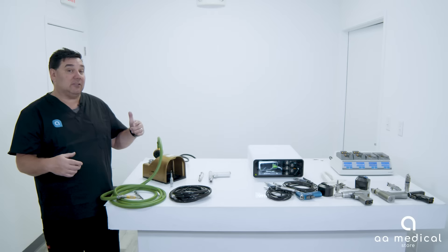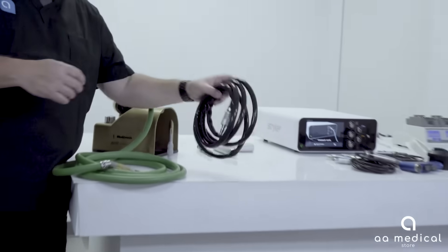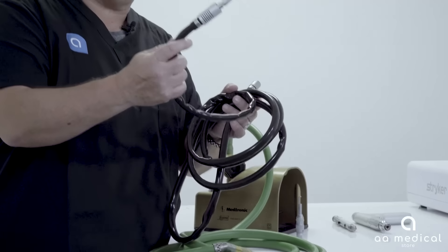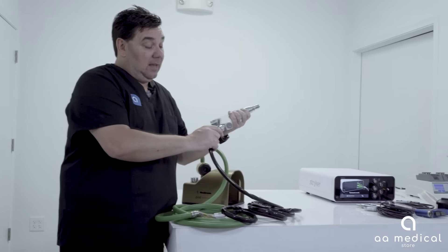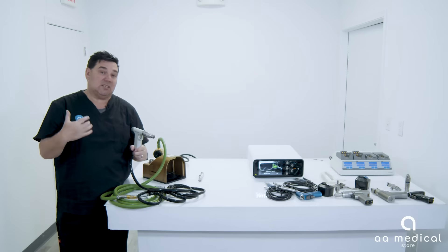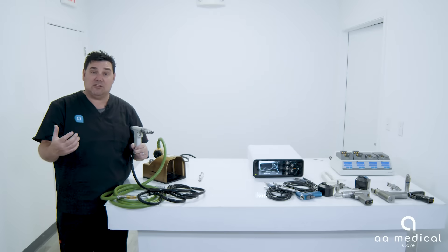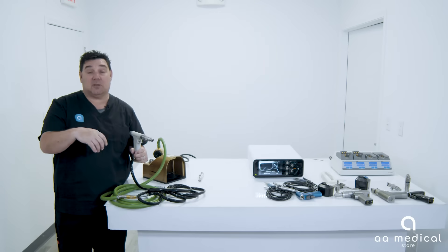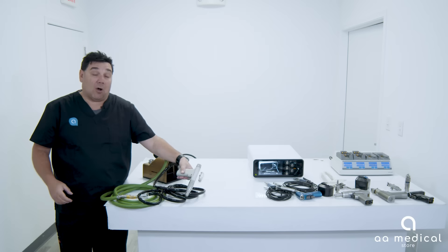The other version shown is the Hall nitrogen system. It works the same way: you have the nitrogen cord where one end plugs into the nitrogen supply in the room and the other end plugs into the hand piece. For this video we did not hook up the nitrogen power to let you hear it run, but it definitely has a different sound than a micro or battery powered system because it runs off nitrogen.